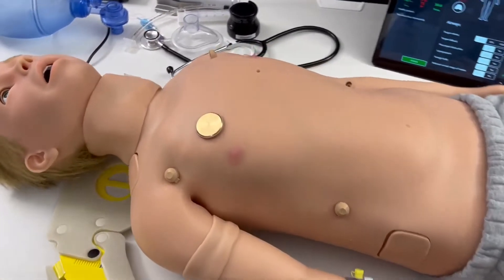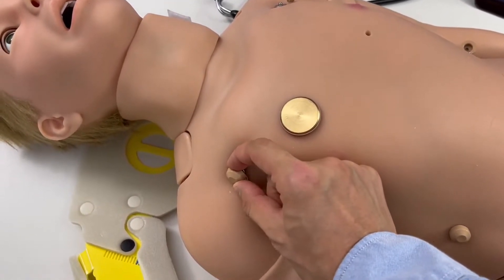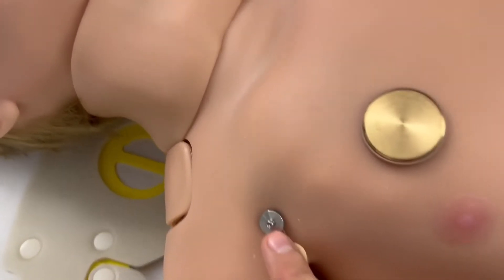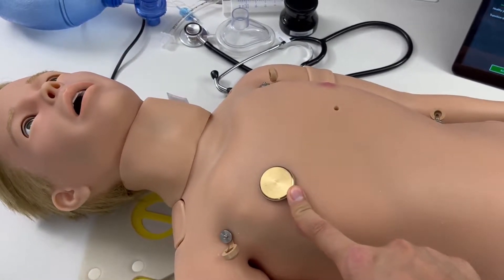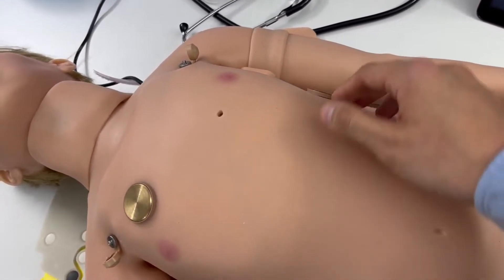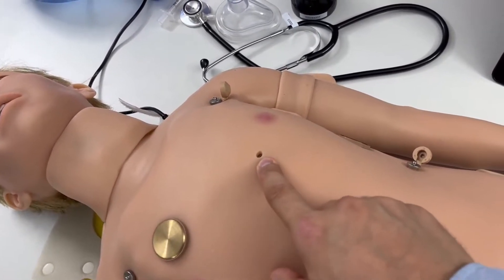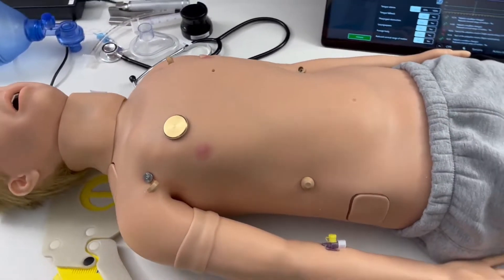What is also instantly noticeable are the pins and plates, as we call them, on Arthur's skin. Under the rubber protector cap there is the pin for ECG where you can attach your real cable, and here is a plate where you would be placing your AED electrode or a manual electrode on top. They can be screwed out and you can change their position — there is one on the back as well for anterior-posterior defibrillation.